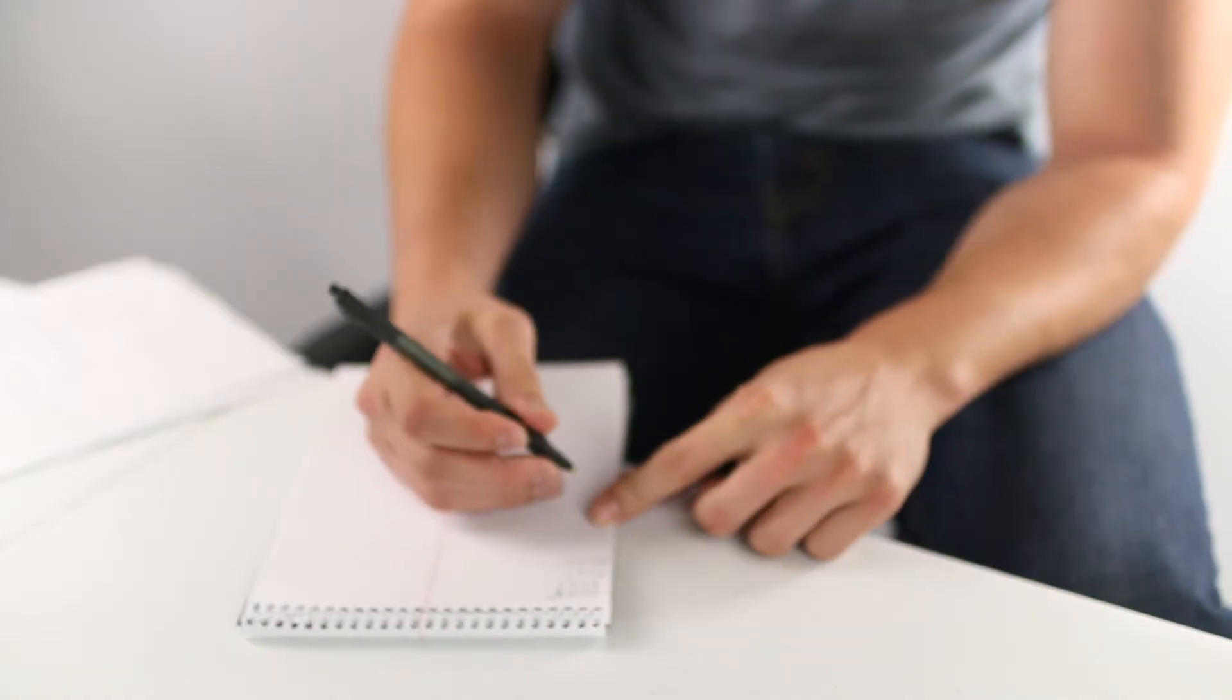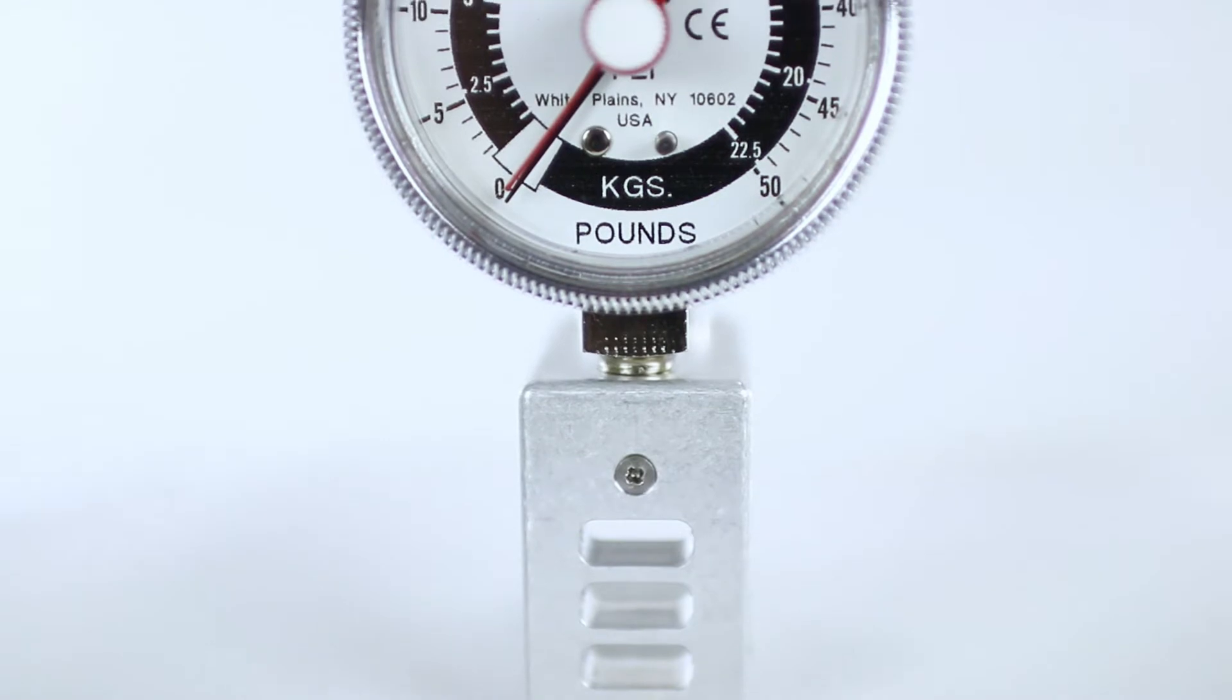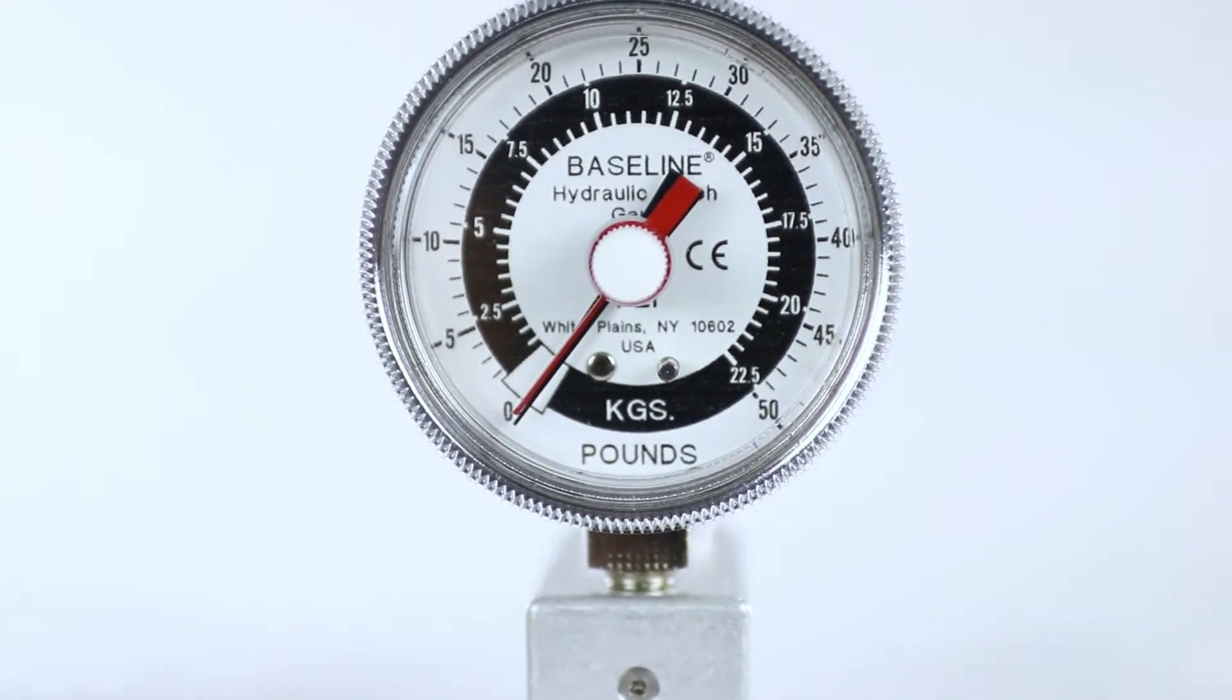This device is used to measure a baseline evaluation so that a therapist can set a plan of care. The progress of this plan can be measured with a pinch gauge for the remainder of the program.